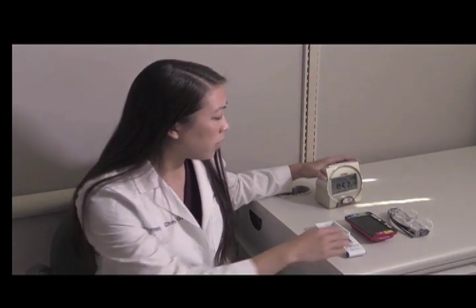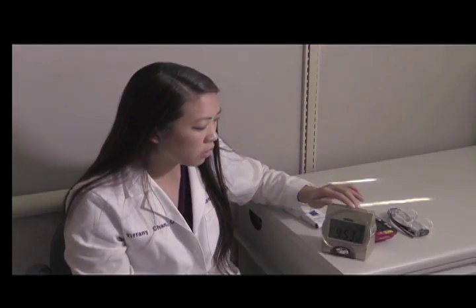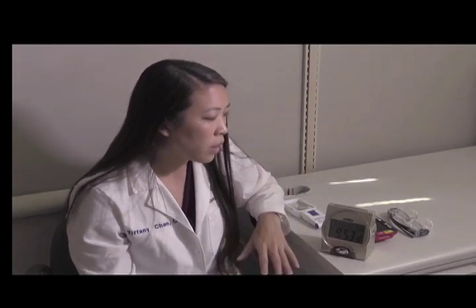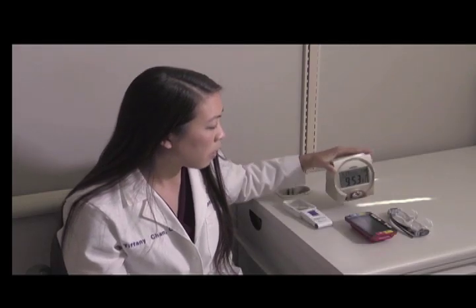Sometimes people have difficulty doing things and we need to rely on other senses such as our sense of touch or hearing. This is an example of a clock, and if we press the button here, instead of relying on vision to tell what time it is, we can use our auditory sense to hear what time it is. There are a variety of different tools that we can use to supplement vision in that way.